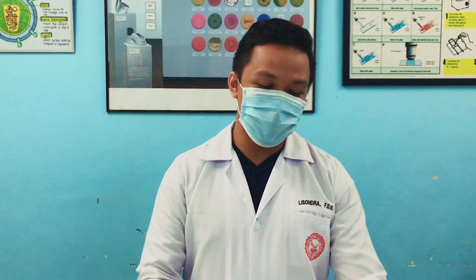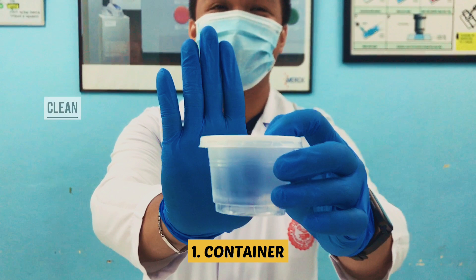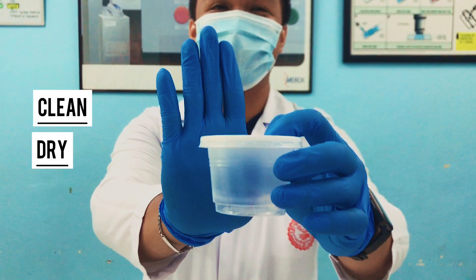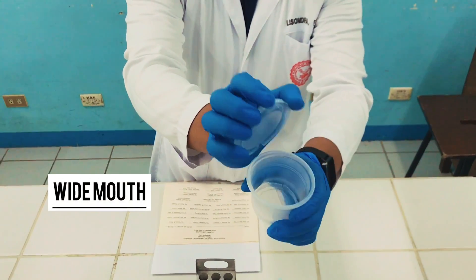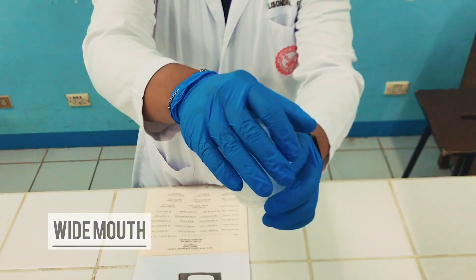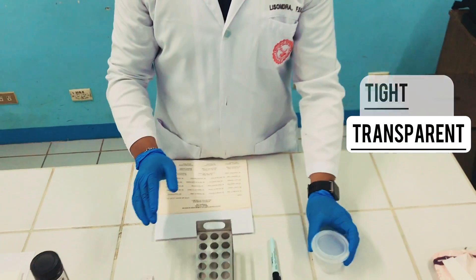Let's start first with our container. The container should be clean, dry, flat-bottomed, wide mouth, with a tight-fitting lid, and it should be transparent.